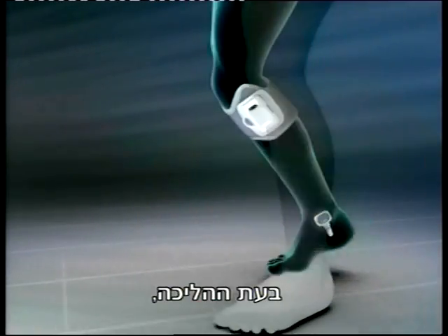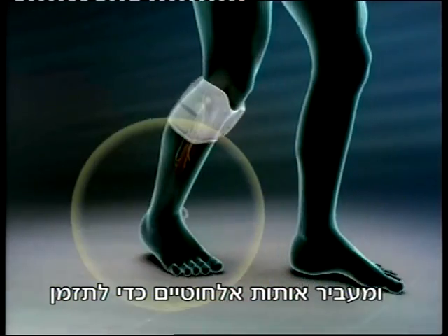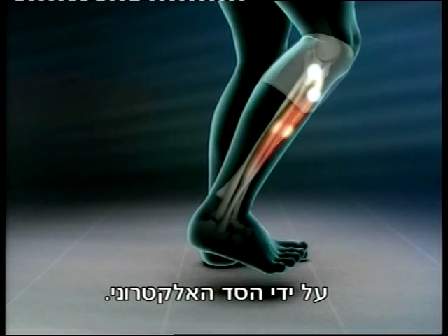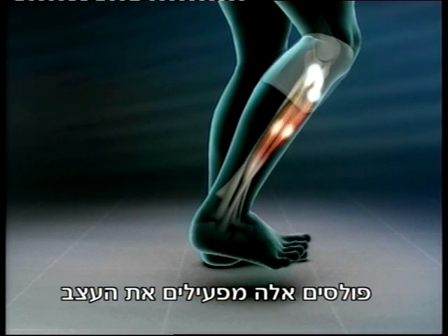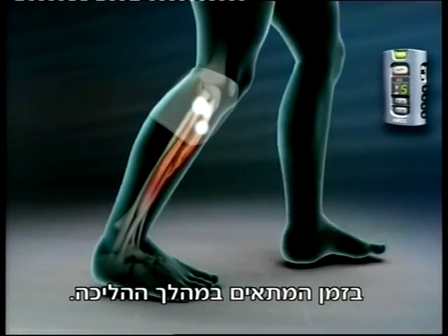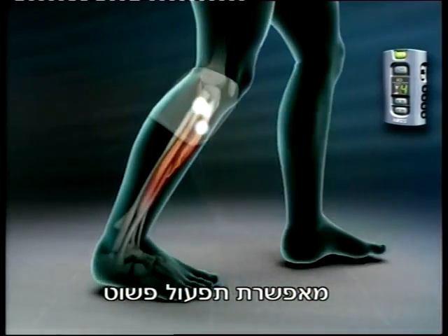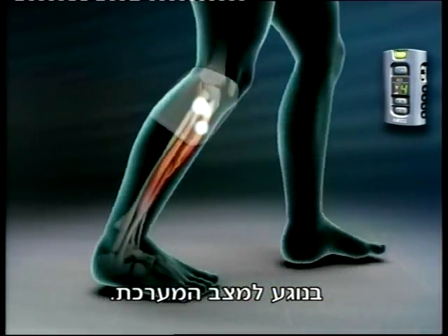While walking, the IntelliSense gait sensor detects gait events and transmits wireless signals to synchronize the electrical pulses delivered by the electronic orthosis. These pulses activate the nerve that causes the foot to lift off the ground at the appropriate time during gait. The miniature control unit allows simple operation while displaying real-time information regarding the system's status.